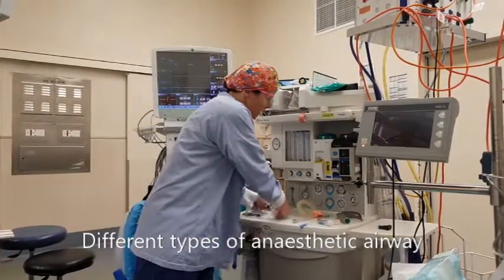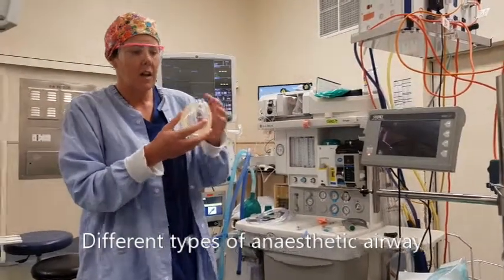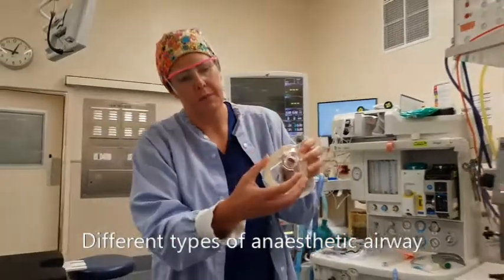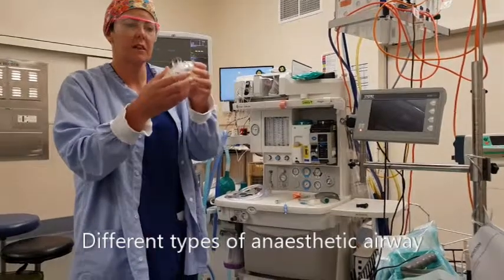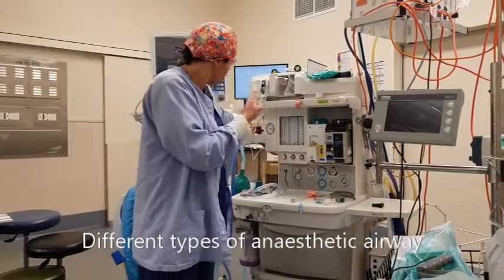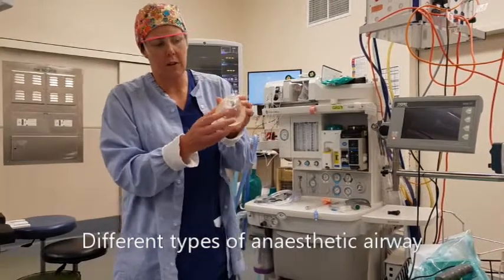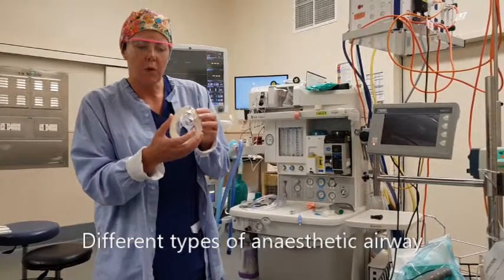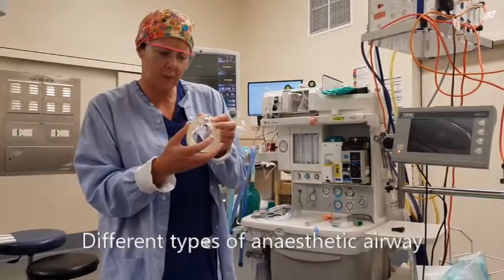If you're having a full general anaesthetic, we'll use this face mask initially, which goes over your face like this. If you are claustrophobic, let us know, because we can hold it above your face until you go to sleep. Once you're asleep, we switch to the next airway and use it to give you ventilation — oxygen to your lungs — while we're waiting for the drugs to take full effect.